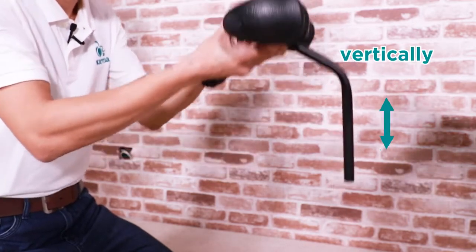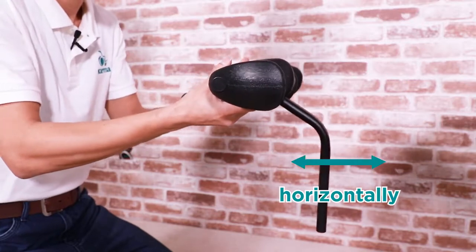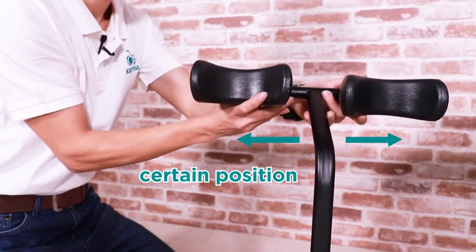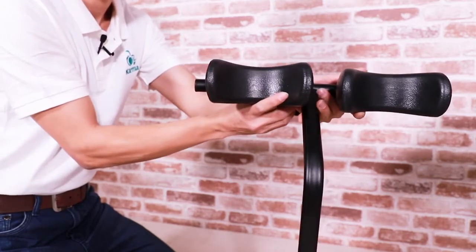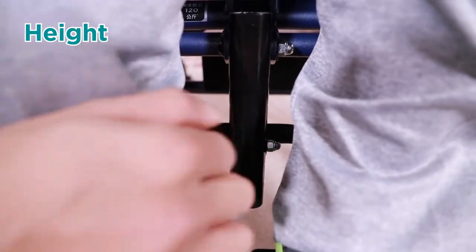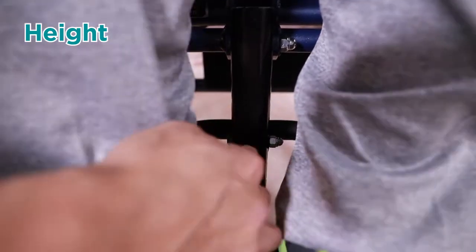The knee support can be adjusted in 4 directions and positions. It can be adjusted vertically and horizontally. The pads themselves can also be adjusted to a certain position and angle. The height of this knee support can be set by these nuts and bolts. We can find them at the base of the knee support frame.